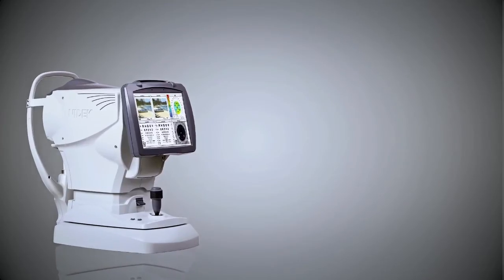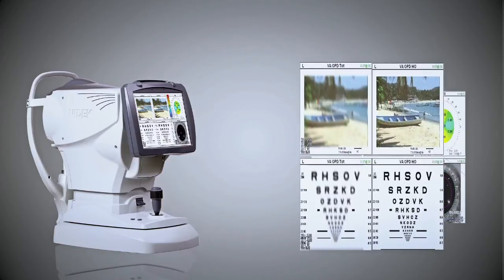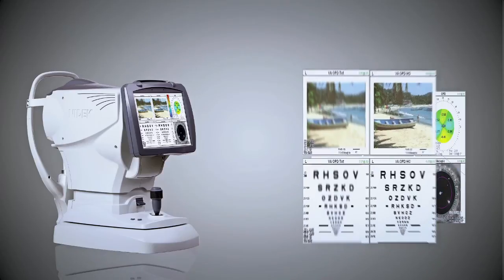Now you can diagnose unseen optical problems. Extremely important is the ability to show patients their vision without correction with the ETDRS chart or beach scene chart, validating to the patient the need for new glasses compared to their uncorrected vision. For the patient, this validates the need for new glasses or cataract surgery.